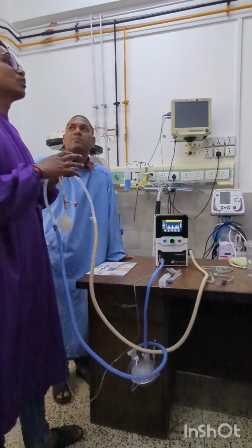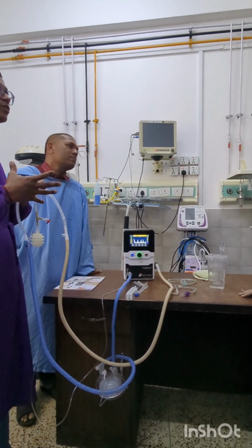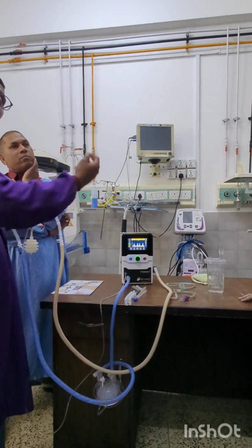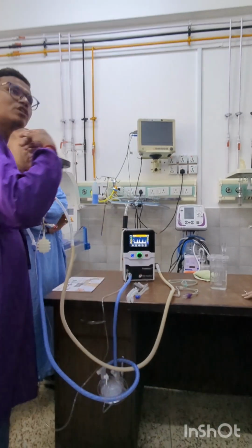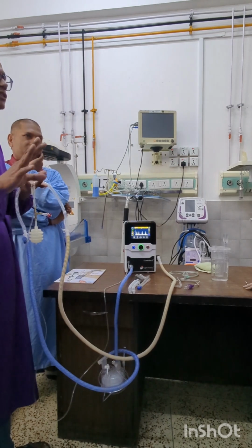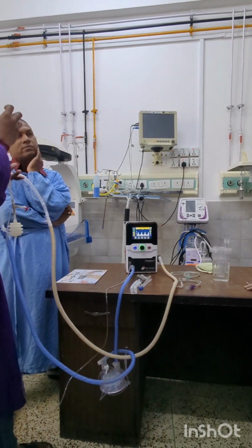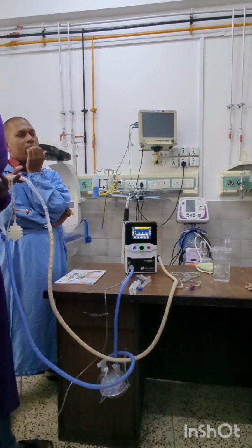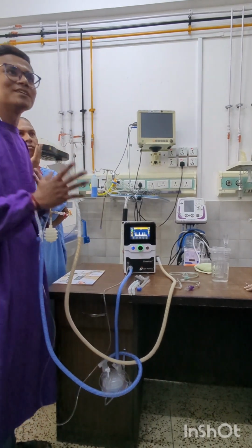So many doctors still want to use bubble CPAP. That is why we have provided an electronic bubbling system and an extra mode of bubble CPAP. Otherwise, if you purchase this machine, you can use nCPAP all the time and save your patients. But some doctors still require bubble CPAP because for the last 15, 20, 50 years they studied only bubble CPAP as the CPAP delivery device in their hospitals.